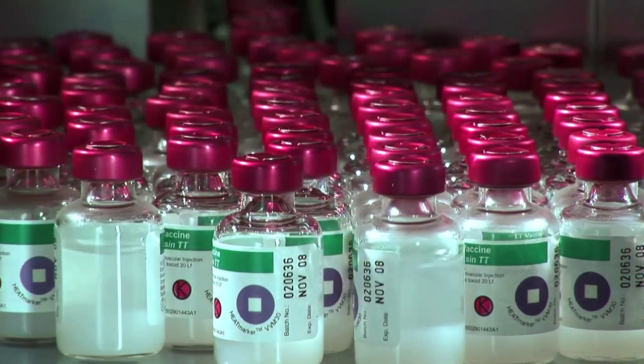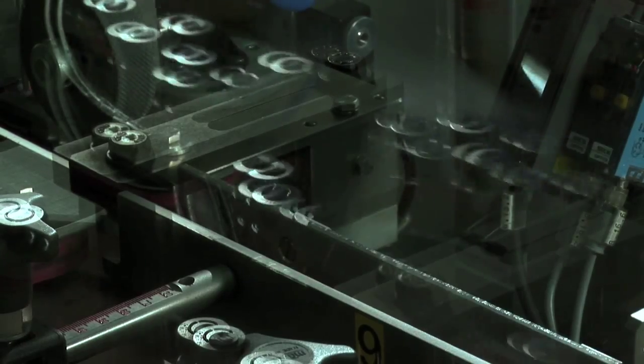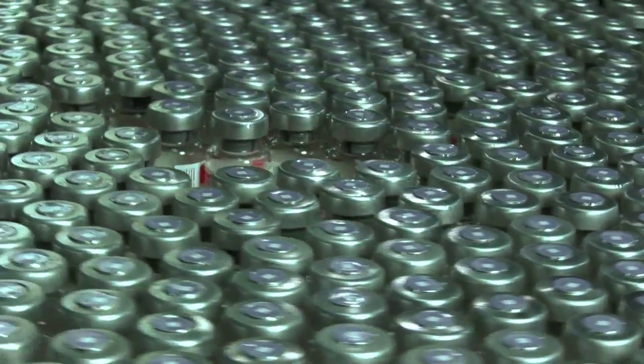It is characterized by this round shape of a lavender color containing a lighter square. This square contains a heat sensitive material which, by changing its color, will indicate the cumulative heat exposure over time.